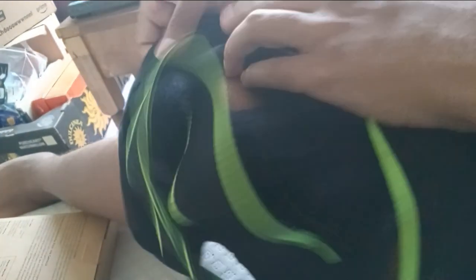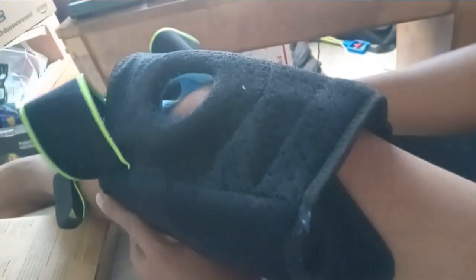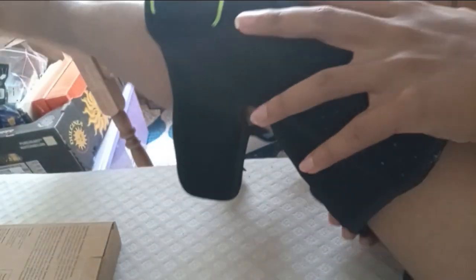Looking at the instructions, it looks like I'm actually doing this the wrong way — it's supposed to be like this. I should straighten my knee. Got to knock over my chains there. Just reposition the camera. Okay, I think that's already good.